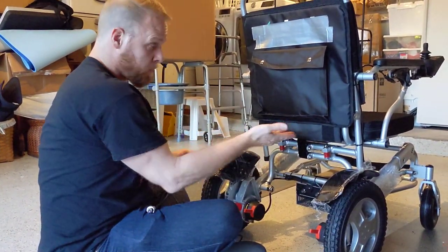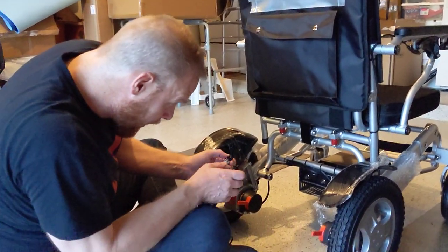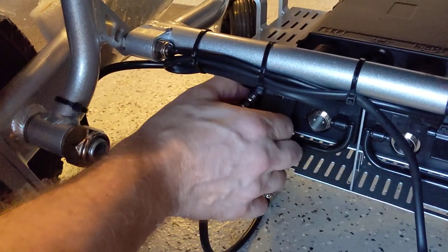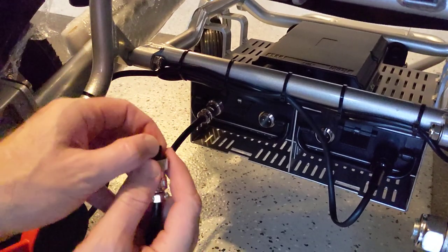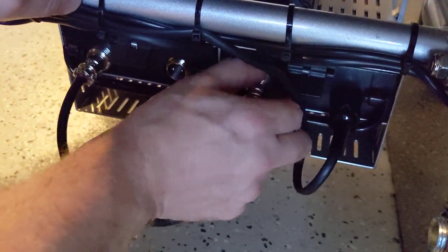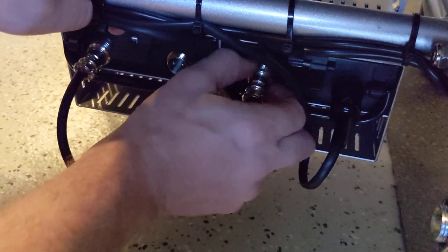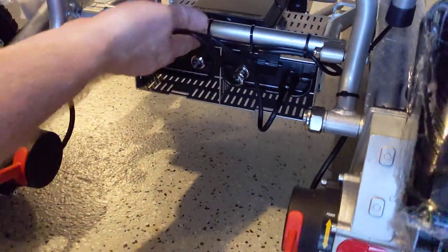Now I've got to do this again. This chair is, understandably, three to four hundred dollars less than the Electro 7 depending on where you get it. Okay, I've got to connect this — doing this as fast as I can. This one doesn't have a sheath. Going as fast as I can here. I'm jamming my finger every time — kind of get it with a little half-circle motion. Still got slack here — okay, there we go.